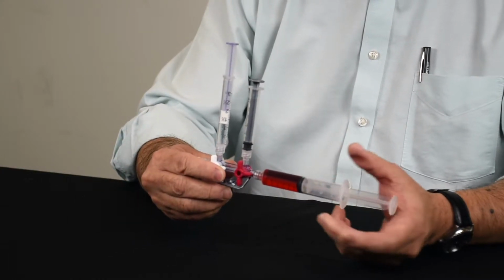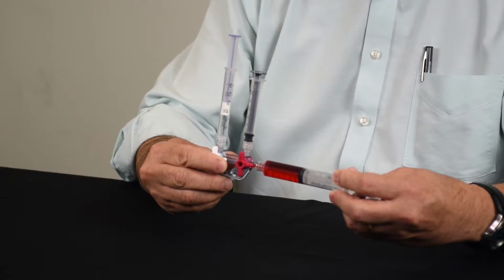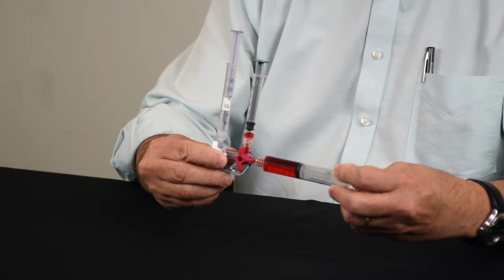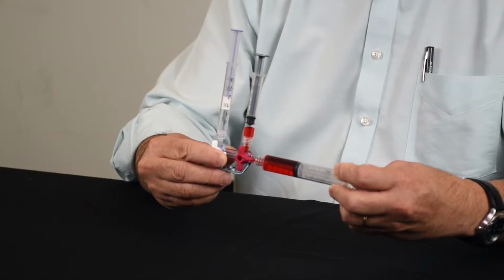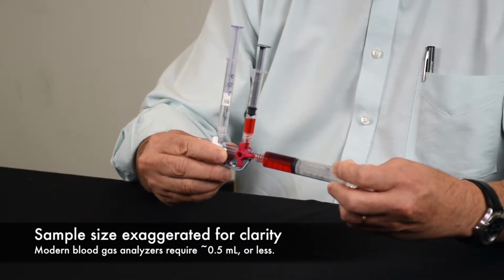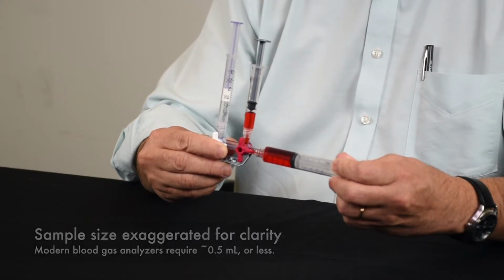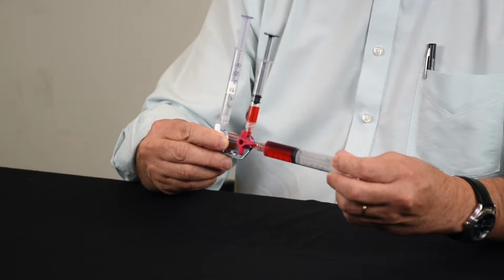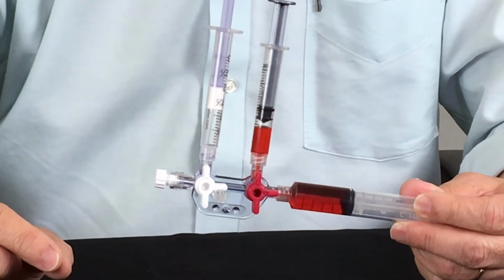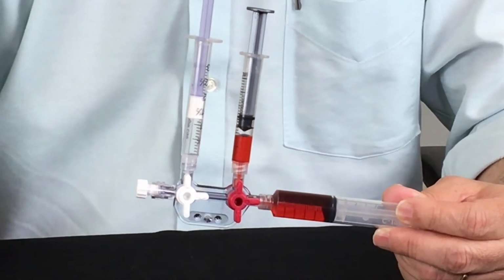And so what I'm going to do is go ahead and push this plunger forward, and as I do that, the non-venting aspirating syringe is going to go ahead and fill. And you can see where the problem is immediately. And this has to do with the air bubble that is now trapped inside of the syringe.